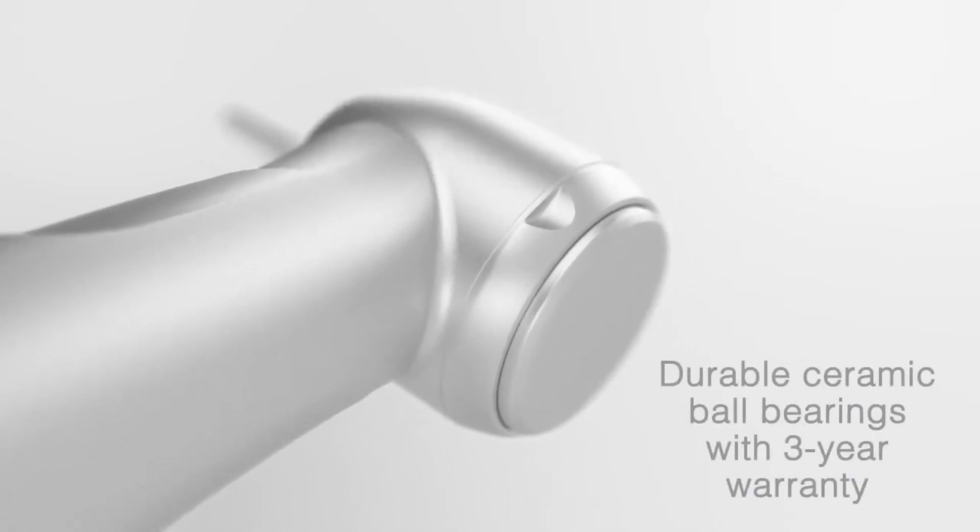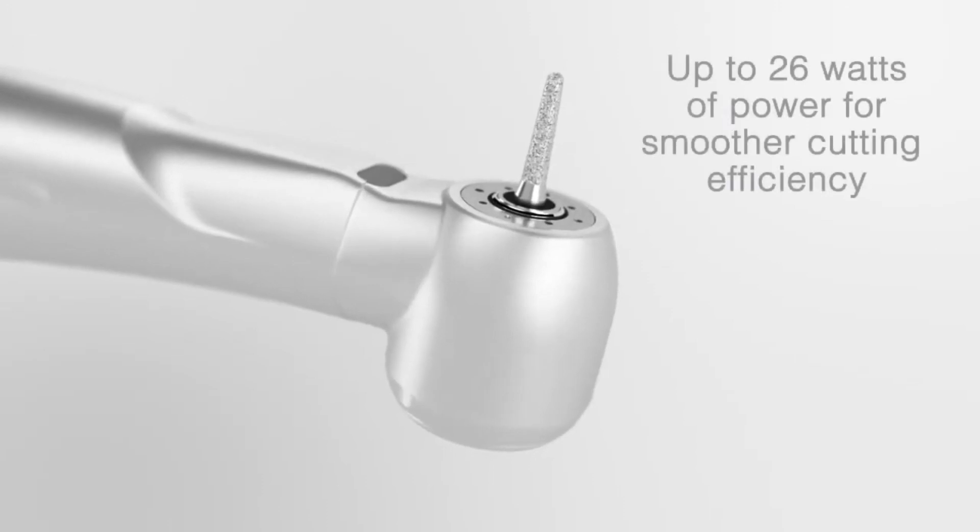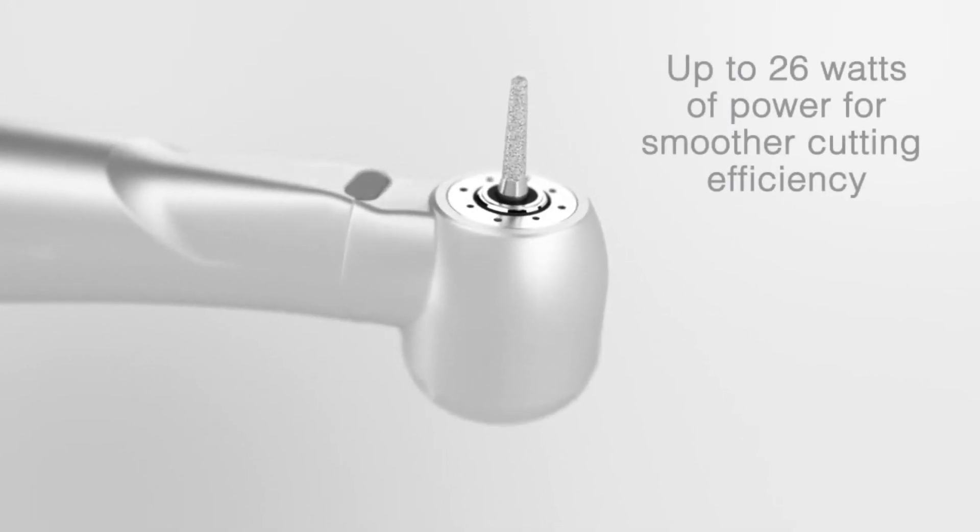The torque of the burr used can vary, since the speed gets to be so high. And since the turbine rotates the burr so quickly, it often requires the use of built-in water jets to keep it cool.